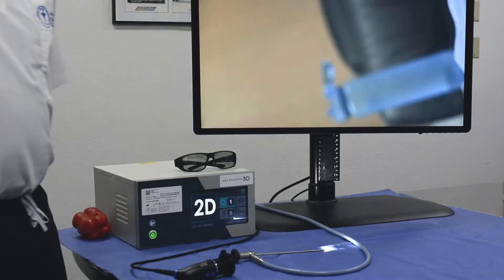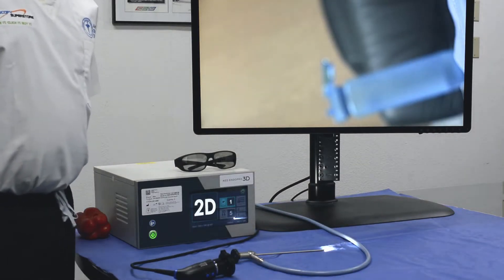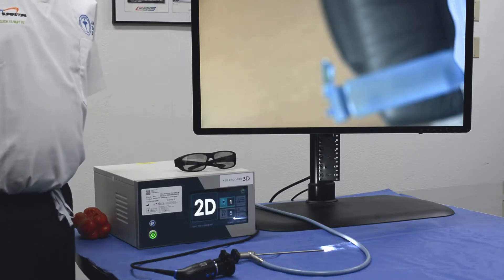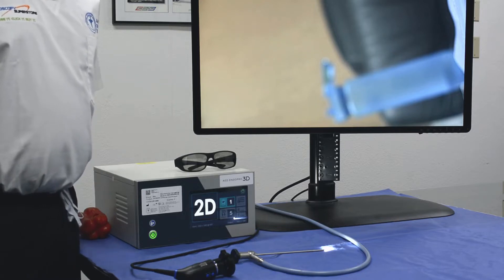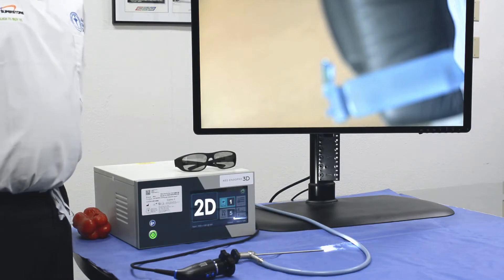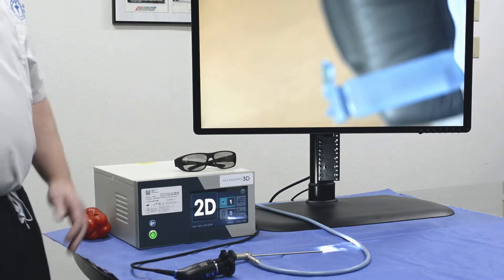Welcome to Advanced Endoscopy Devices. Today we're very excited to share with you a completely novel device and a true revolution in 3D endoscopy. This is our EndoPro 3D system. This system integrates with all existing 2D endoscopic equipment, including the monoscopic scopes in inventory and existing camera systems.